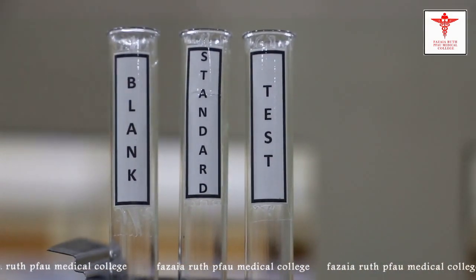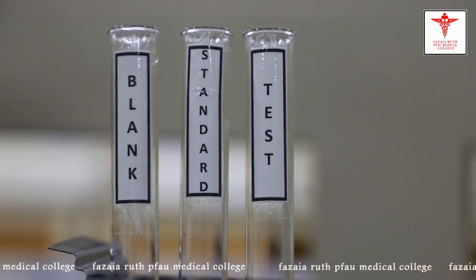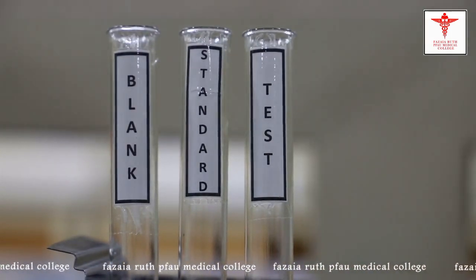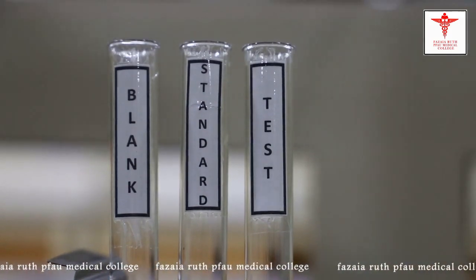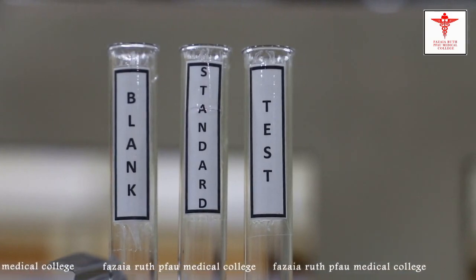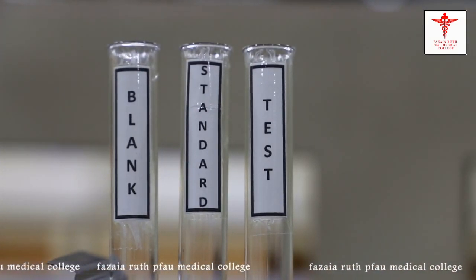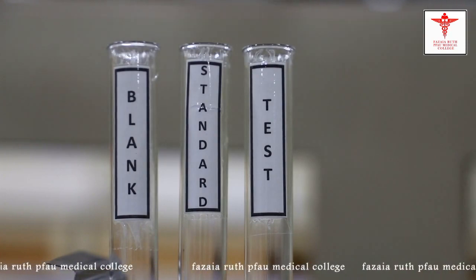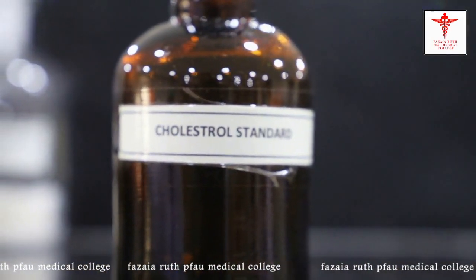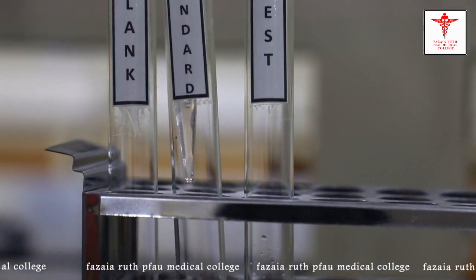The next component is the addition of cholesterol standard. For this cholesterol standard, we know its concentration. We will again take 0.1 ml of this cholesterol standard and add it to the test tube which is marked as 'Standard'.